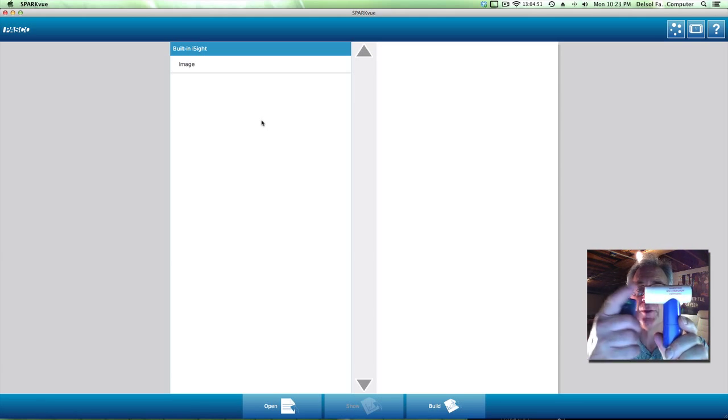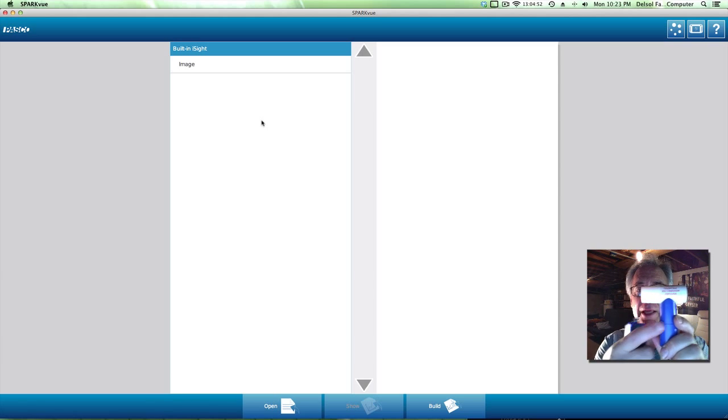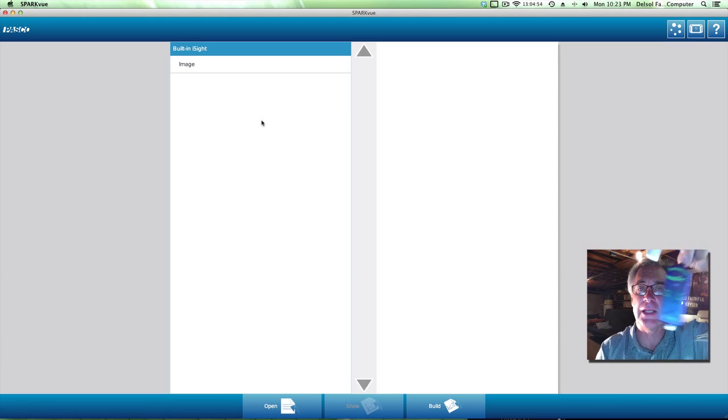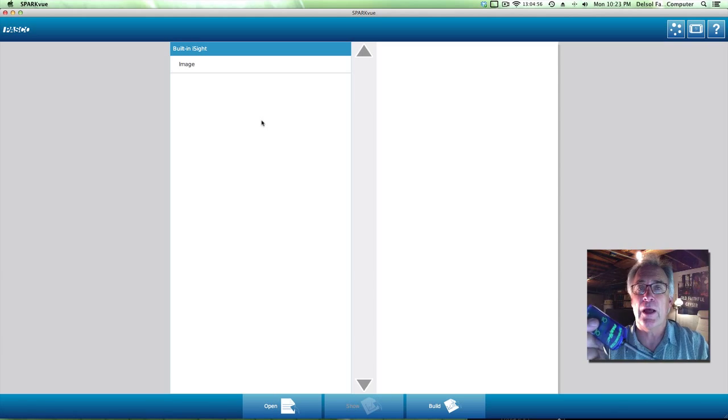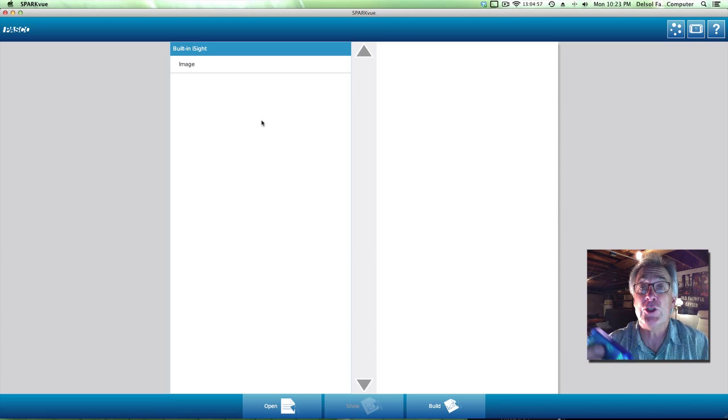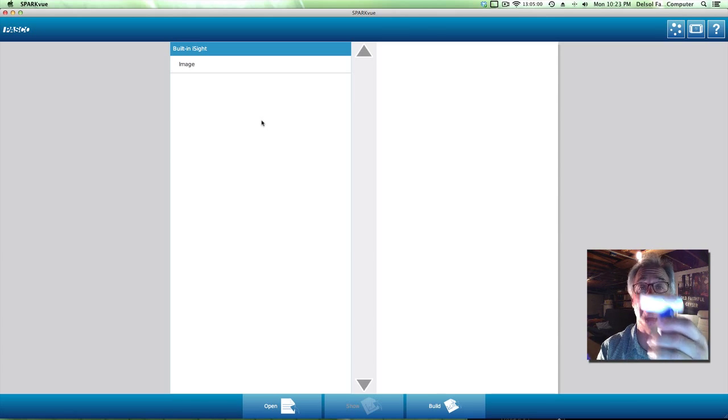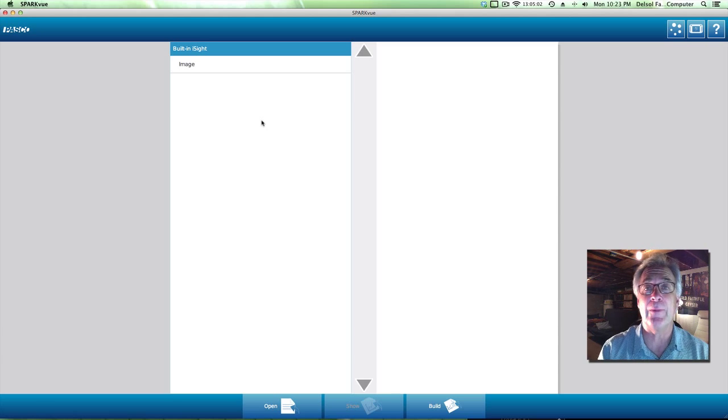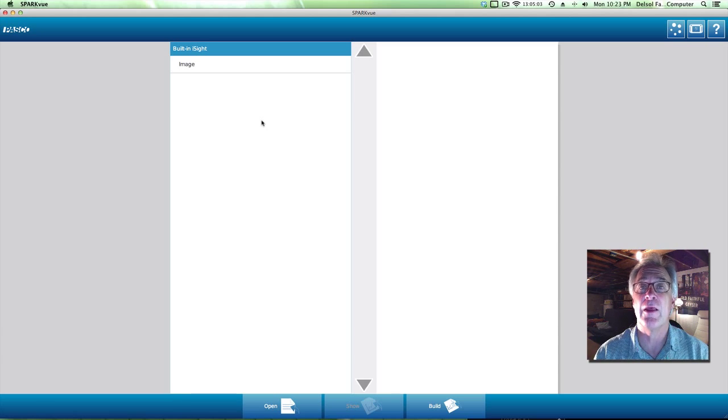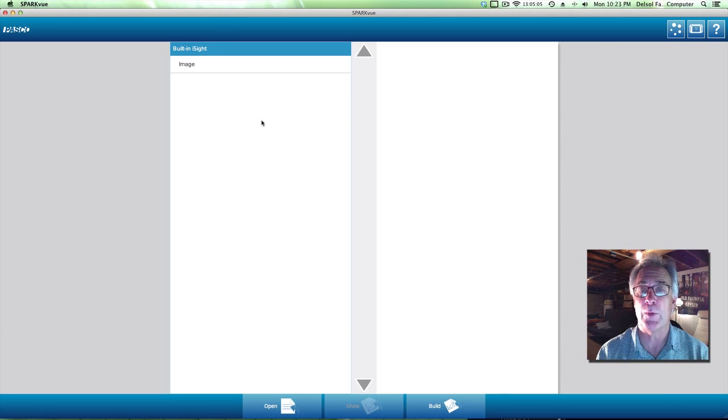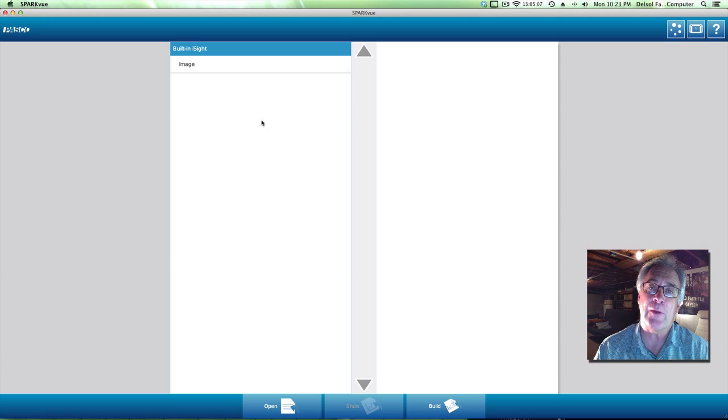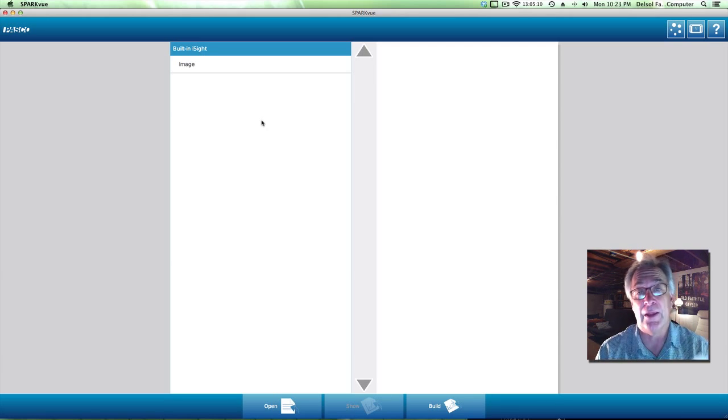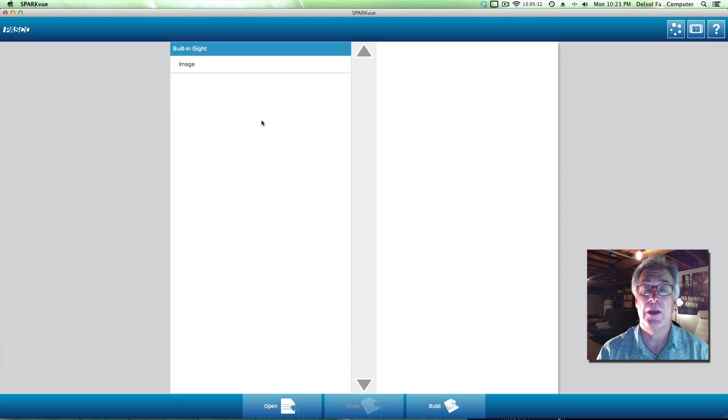It has a mouthpiece, it has the handle, and of course the amplifier box. I'm going to demonstrate for you how to set this piece of equipment up and how to use it to be able to figure out the amount of air that's within our lungs. So we're going to look at respiration and in particular tidal volume and some other terminology like that.